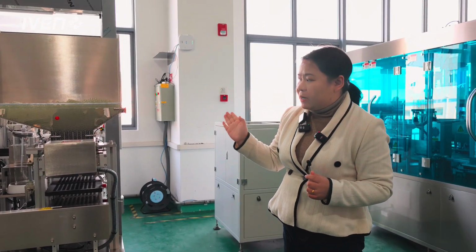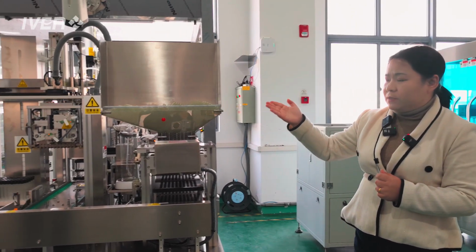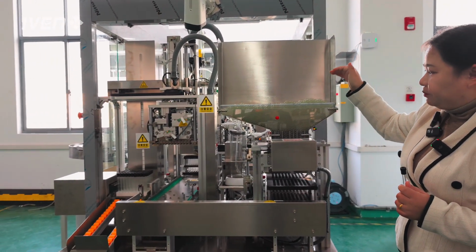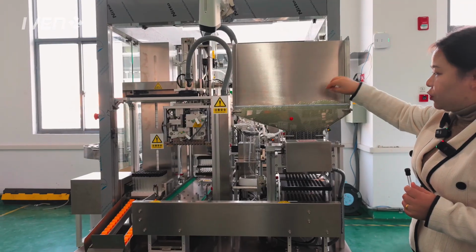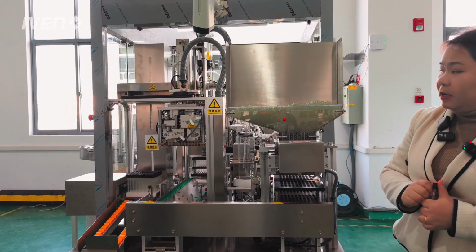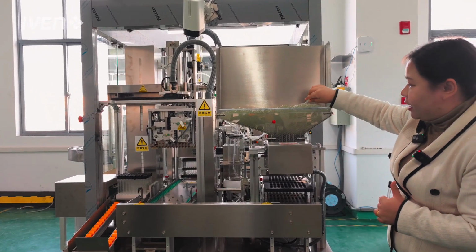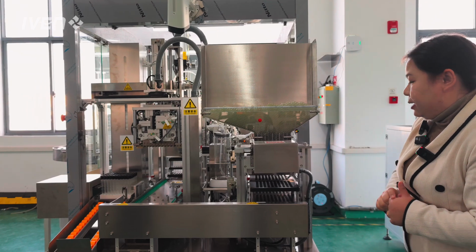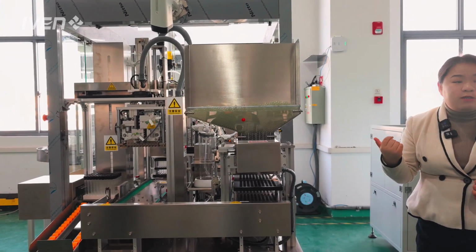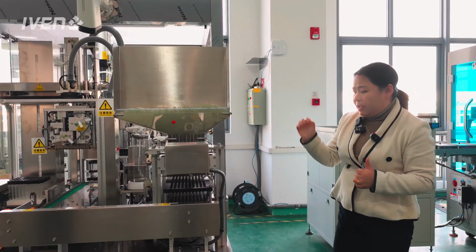In our machine, we can first transfer the raw tubes one by one here. We fit the tubes in here, and each tube is glass, so we have to handle it carefully, okay? I'll give you more introduction about each station of this machine.